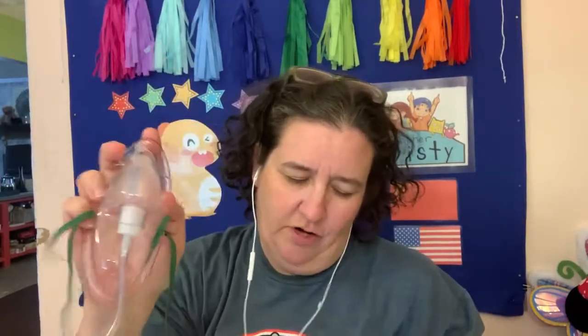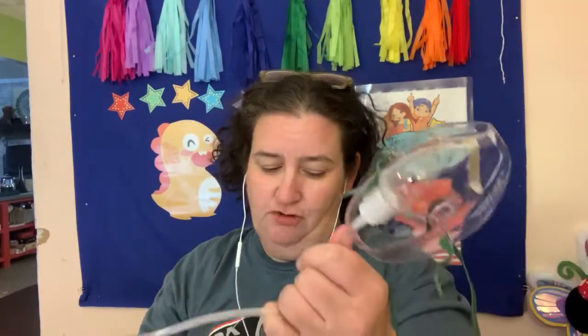The simple mask runs from five to ten liters per minute and gives 35 to 50 percent FiO2 — variable. Advantages: it's quick, easy, available in adult and pediatric sizes, and gives a decent FiO2 up to 50 percent, which is right at the level of oxygen toxicity — so you don't want to go much higher if you don't have to. It also works better than a nasal cannula for mouth breathers, since nasal flow doesn't do much if you're breathing through your mouth.